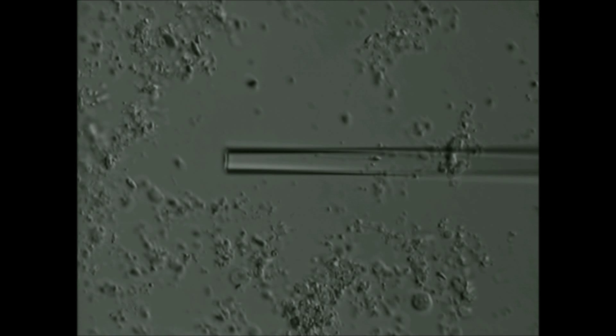Welcome to the Center for Reproductive Medicine and Robotic Surgery. Here you will see the high-tech procedure of individualized HOS test for testicular sperm.